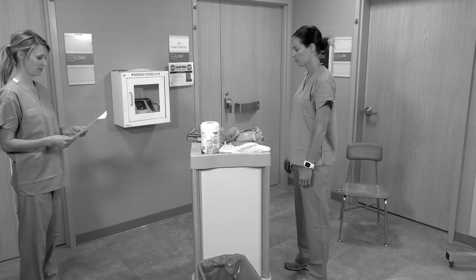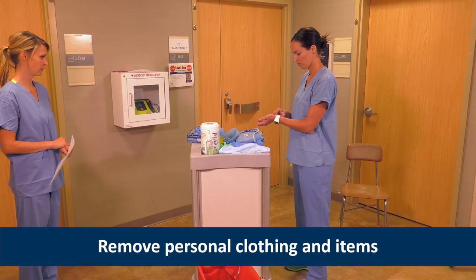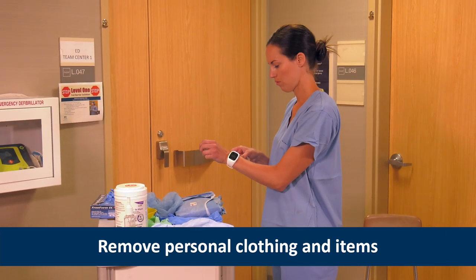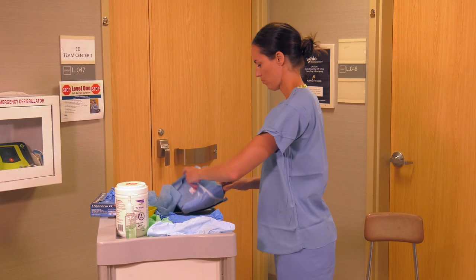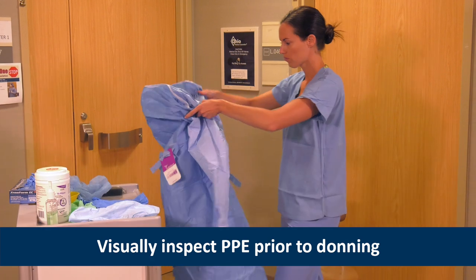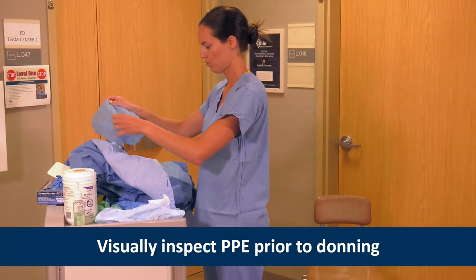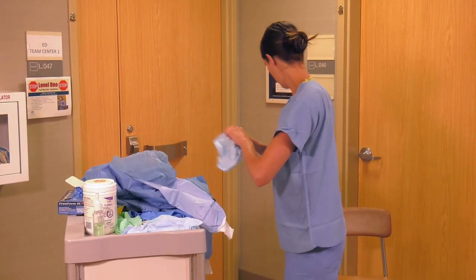Angie is a trained observer, and she will read the steps out loud while Heather dons the PPE. Heather starts by removing personal items like watches, cell phones, and pagers. Long hair and eyeglasses should be secured with a tie. Heather visually inspects all PPE prior to donning to assure that it is not torn or ripped. This demonstration uses a gown ensemble. She selects the correct size PPE, ensuring that the gloves fit properly and her gown falls to mid-calf.